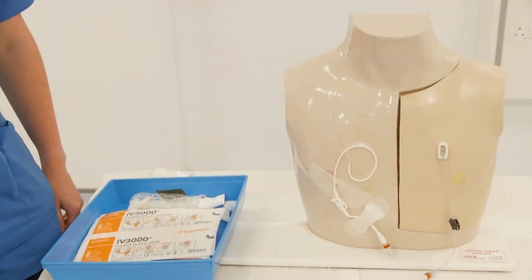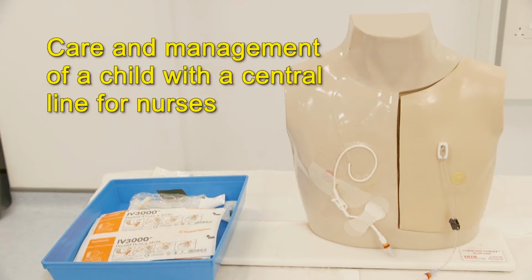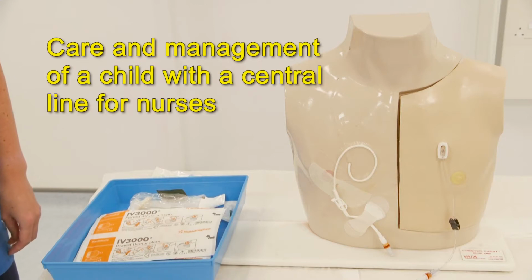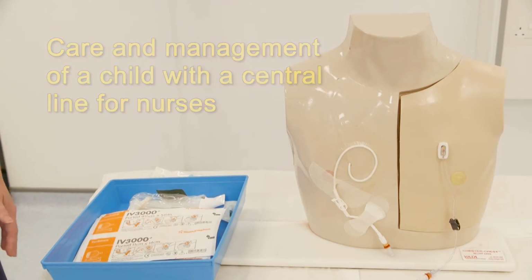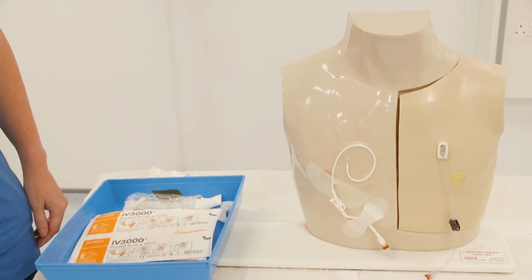So this is an introductory video into the care and management of central lines in children. This is in conjunction with the guidelines that are on the PEER website under the oncology section. So it's very common for children with an oncological diagnosis to have different types of central lines.